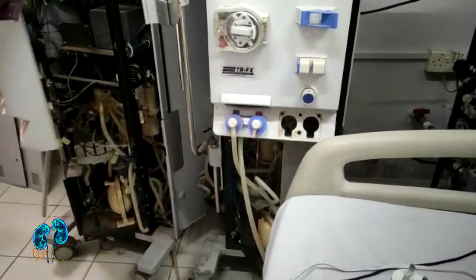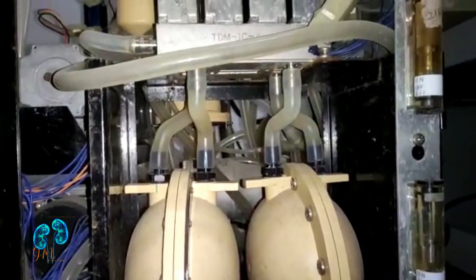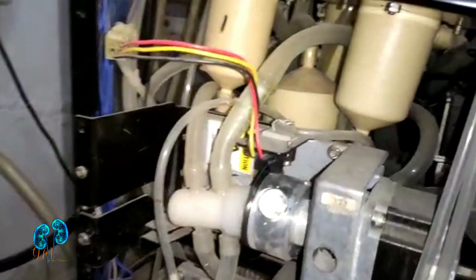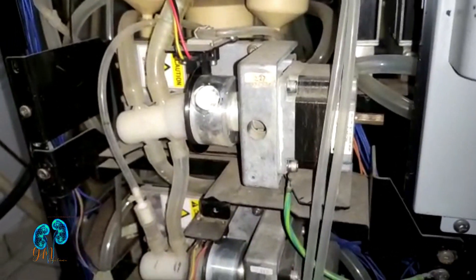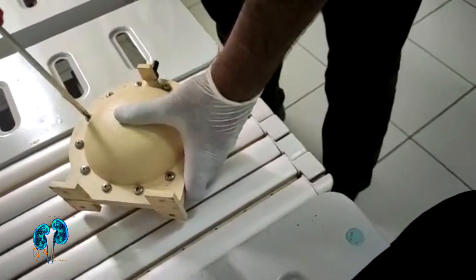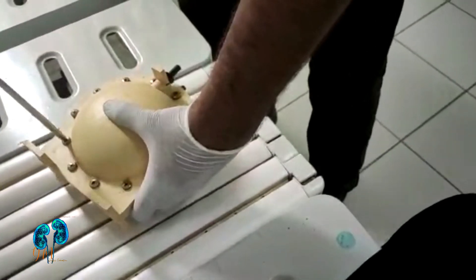This is what the inside of a dialysis machine looks like. As discussed, volumetric-based ultrafiltration control has two balancing chambers separated by a flexible membrane, with inlet and outlet ports. The inlet and outlet are controlled by solenoid valves — similar to the black and white valves described earlier — and the chambers are regulated by motors. The chambers are secured by many screws to prevent leakage of fresh and used dialysate.